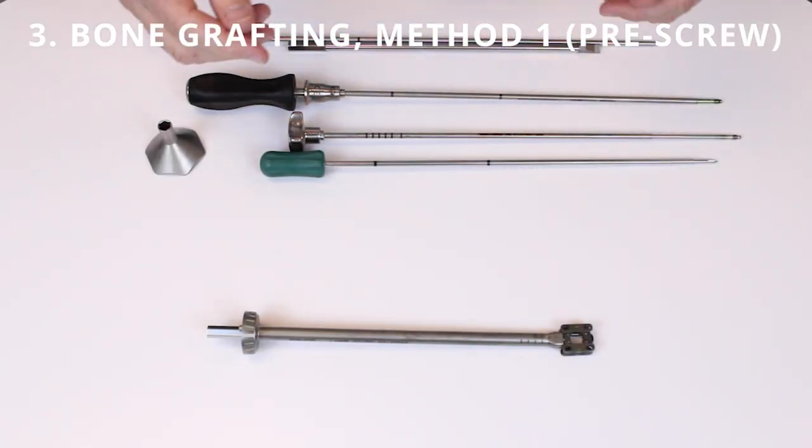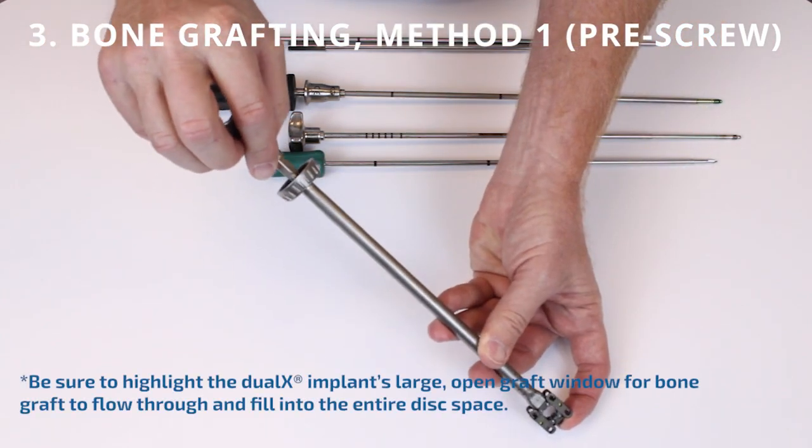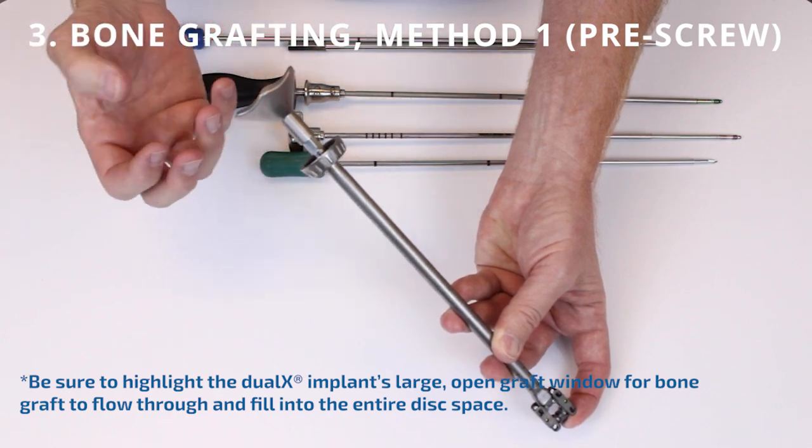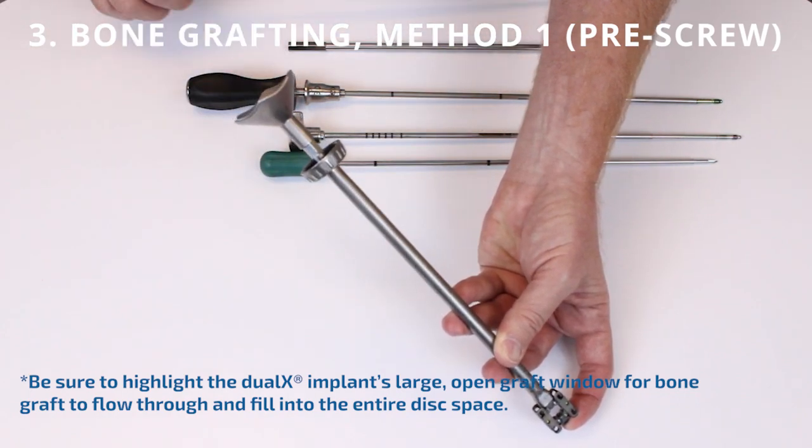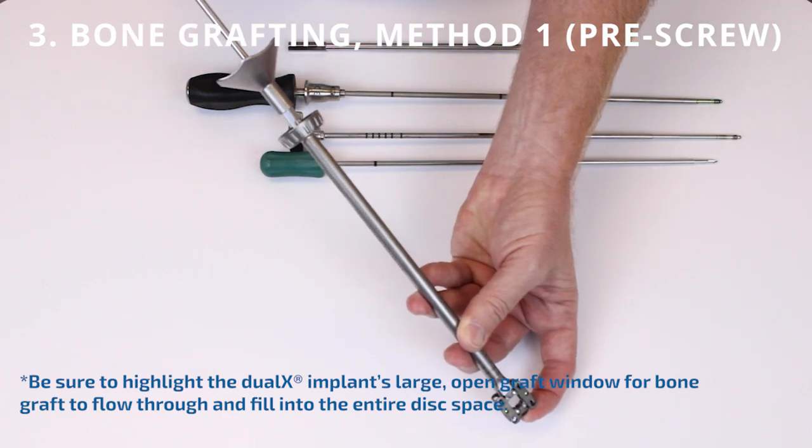Now it's time for graft delivery. Put the funnel on the inner tube and put bone graft and deploy it while this tube is still attached to the implant.